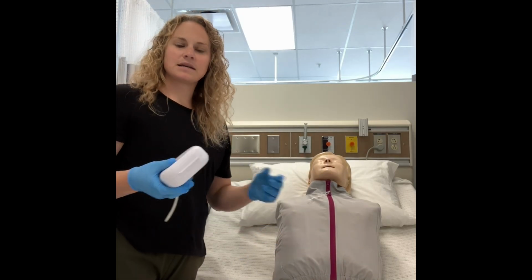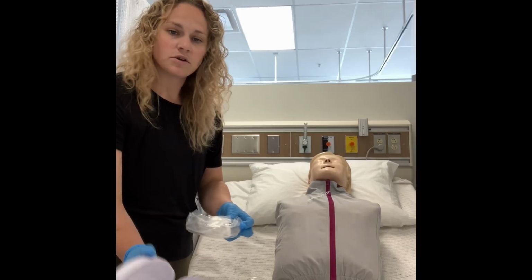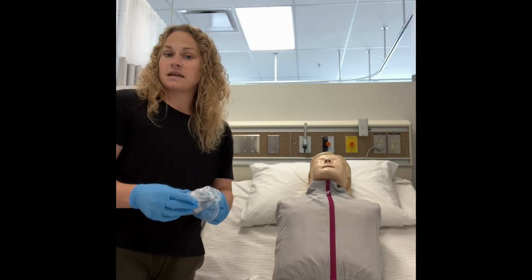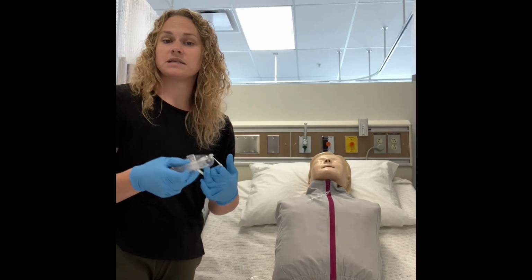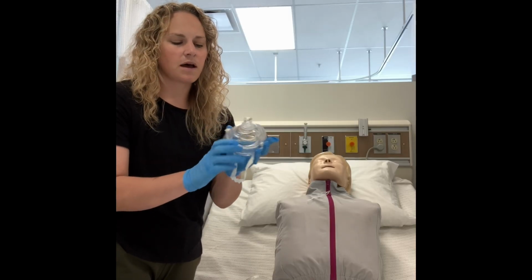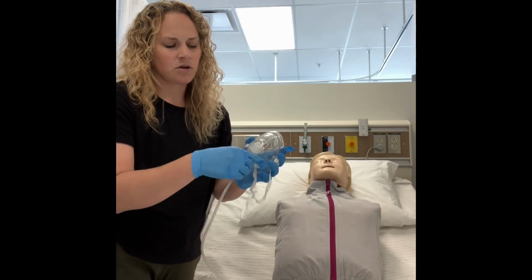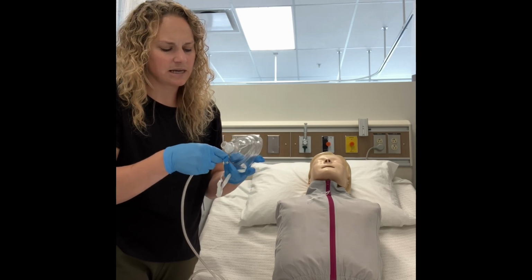Similar to a standard mask, we can use a pocket mask to deliver oxygen to a patient who is breathing. A pocket mask is useful because it is one of the only delivery devices you can use for someone who is and is not breathing independently. You take your pocket mask and then you open the clip on the bottom here. Your oxygen tubing connects to your pocket mask, making sure that it's sealed nice and tight.